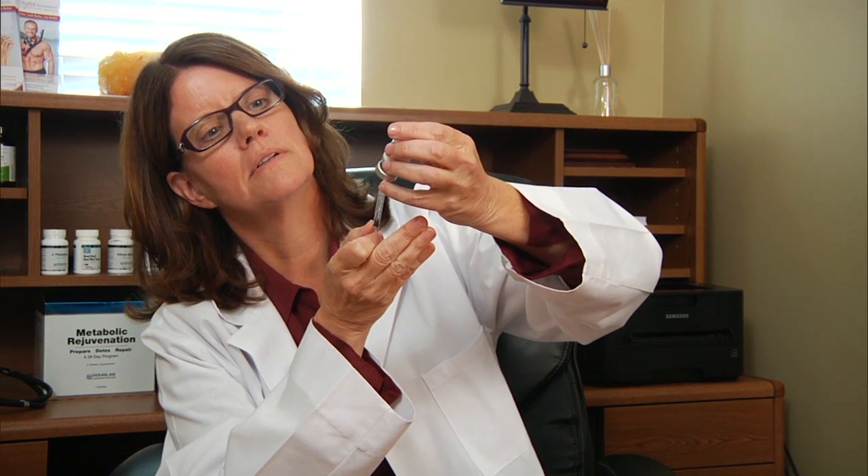With this you'll need an insulin needle. Withdraw the plunger to the dose specified on your prescription label — so if it says 40 units, withdraw to 40 units. Then hold the bottle upside down, put the needle in, inject the air into the vial, and slowly withdraw the fluid to the 40 mark. It's good to withdraw a touch more so that if there are any air bubbles you can get rid of them. Flick the syringe to remove air bubbles, then recap and you're ready to inject.